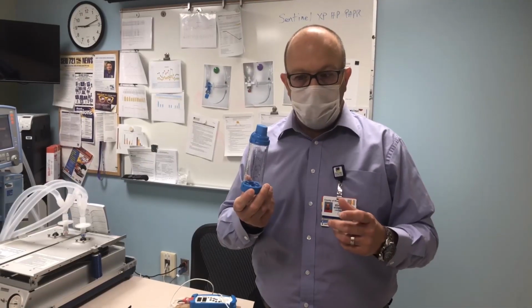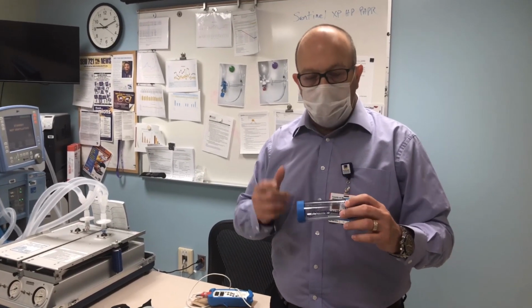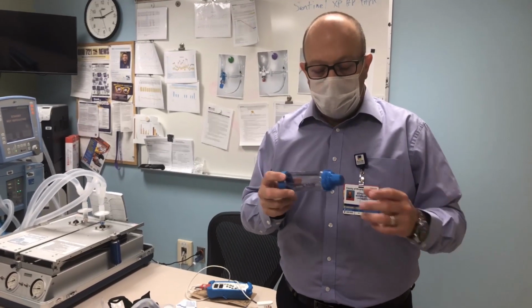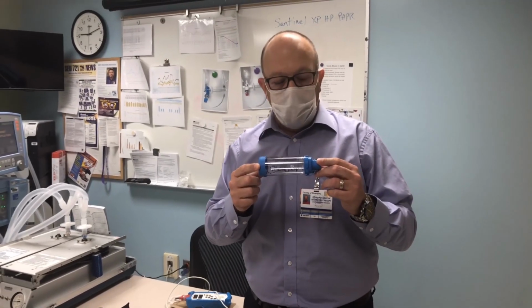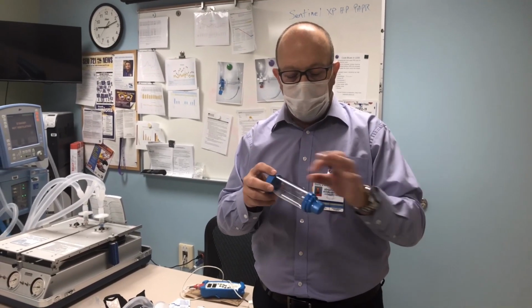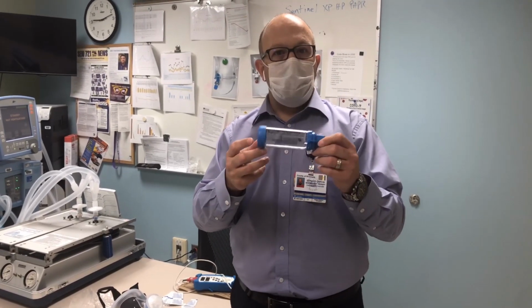But now we're talking about a spacer, and what we've decided to do, with the help of the infection control department, is to maximize the amount of inhalers that we use by using what we call a common canister approach. Basically what it means is that every patient is going to receive their own spacer with their name on it. We can put a patient label on it, we can scribble their name, however anybody wants to identify. Here we're going to put the patient's label on it, and this will remain with the patient. So we'll have 3 patients, and the 3 patients will each receive one.